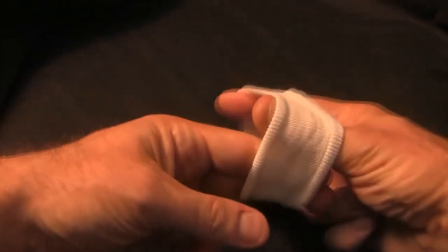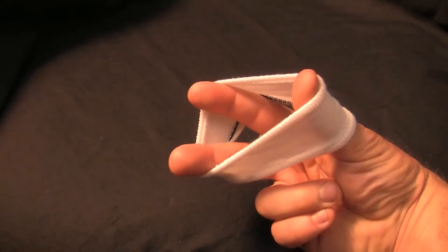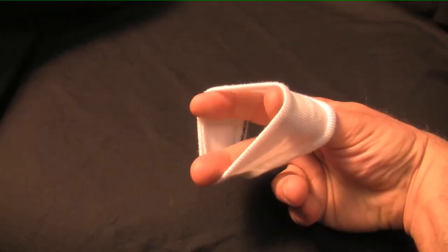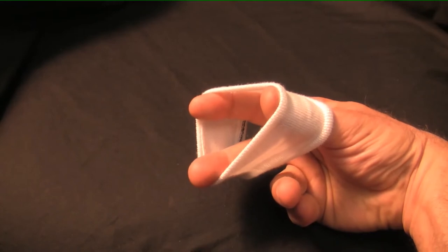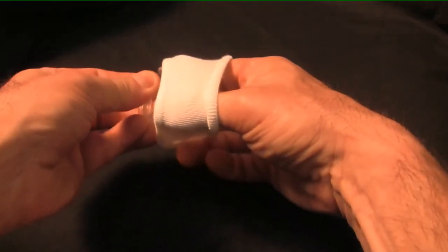Using Snugs is easy. First, slide your hand through the mask liner with the black line towards your knuckles. Use your fingers to spread the liner open. Next, stretch the liner over your nasal mask so that it covers the rubber mask cushion.